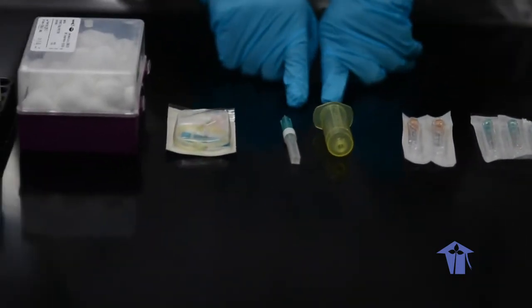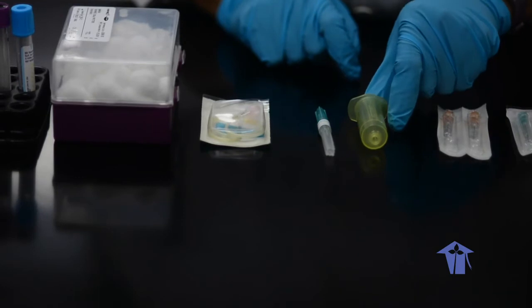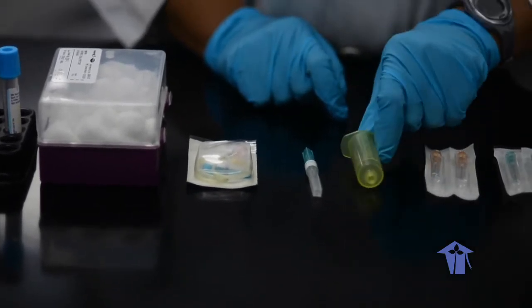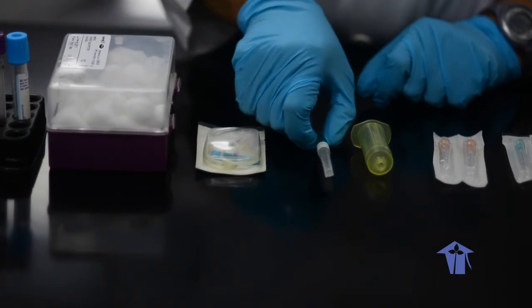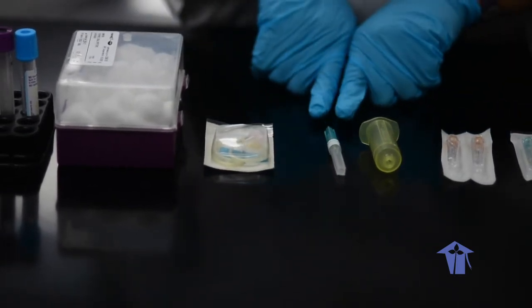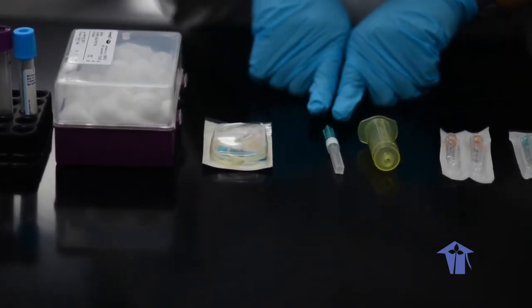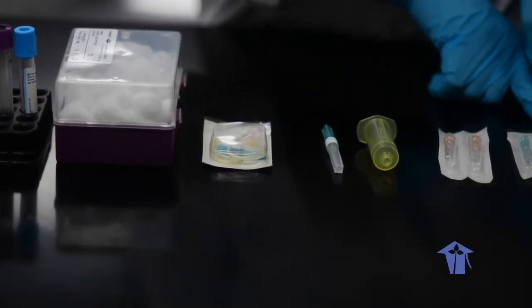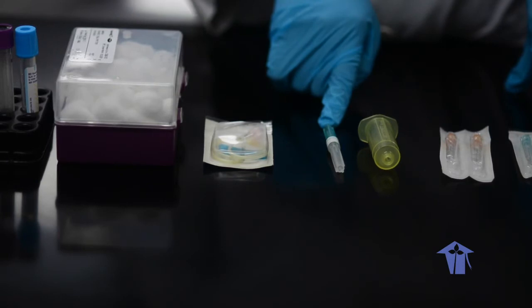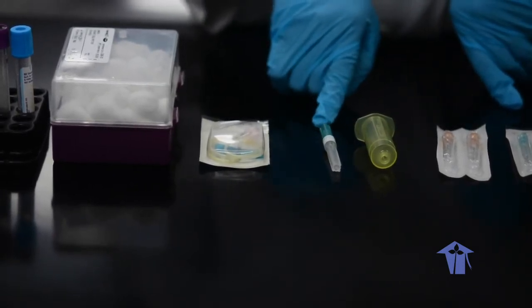For the ETS method, we have the tube holder, and we have a needle. The needle also comes with different sizes, and it follows the same as the syringe method. So in this one, it is a gauge 21 needle.